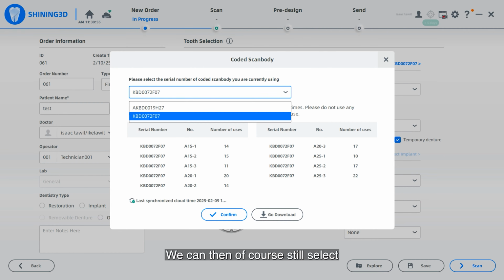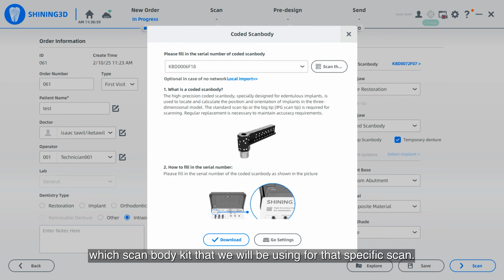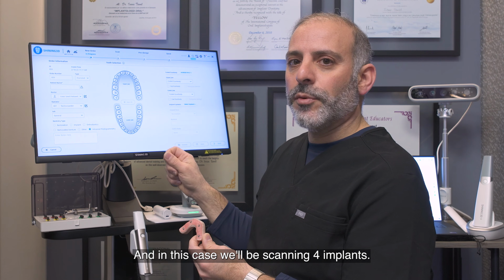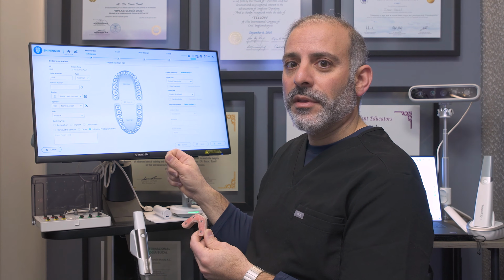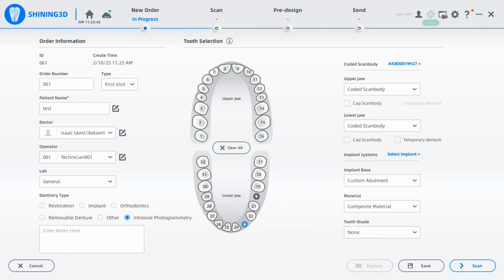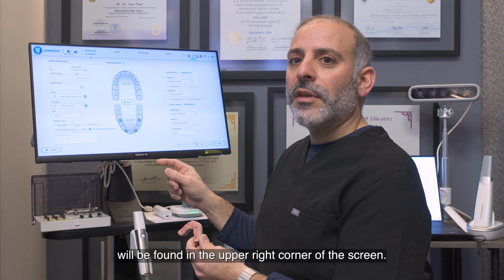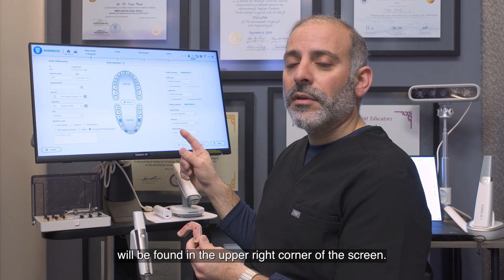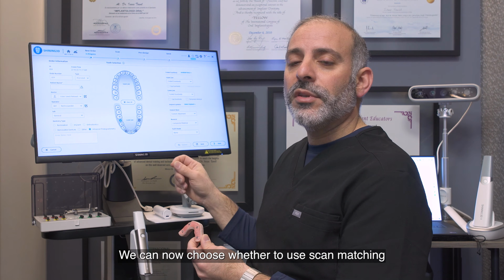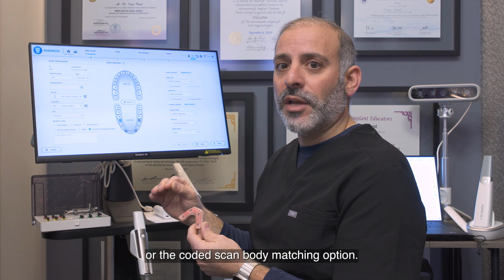we can then, of course, still select which scan body kit we will be using for that specific scan. In this case, we'll be scanning 4 implants, so we'll pick 4 implants. The new addition will be found in the upper right corner of the screen. We can now choose whether to use scan matching or the coded scan body matching option.